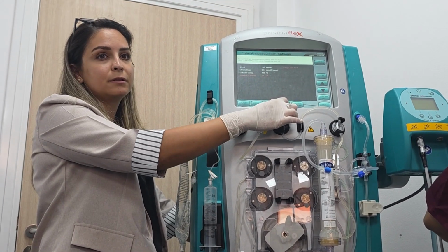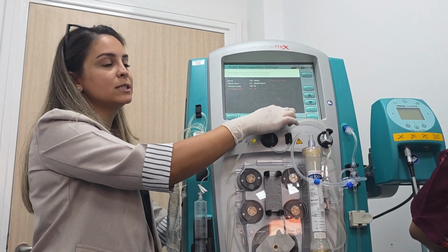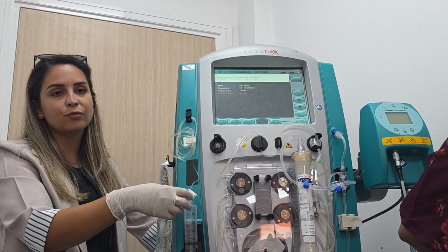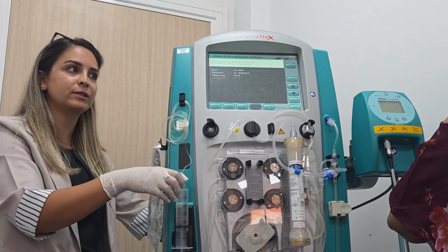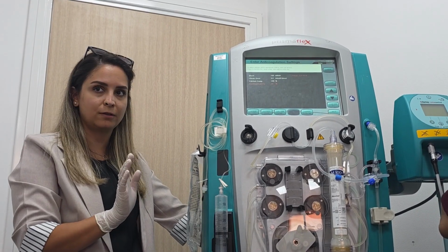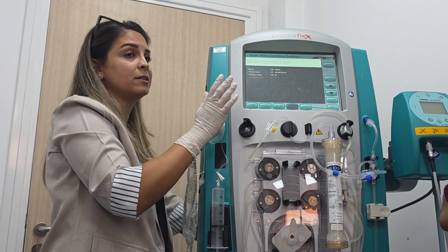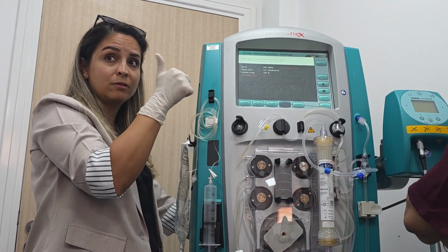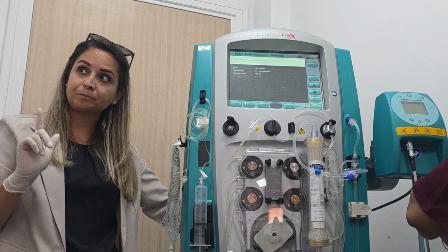Then, patient hematocrit, this you already entered. Next one is change syringe or line. If you want to remove the syringe, maybe you didn't put calcium and you want to put calcium. Anyway, from the beginning you already put calcium, so no need to change it. Clear for these? So see, I didn't change anything. Citrate dose I kept 3, calcium compensation 100%.